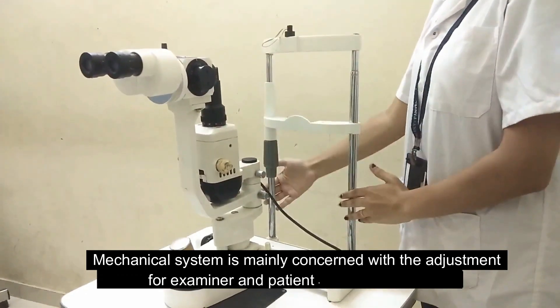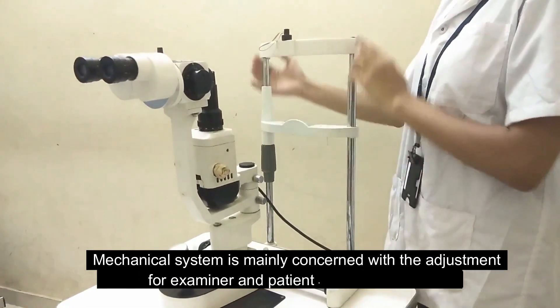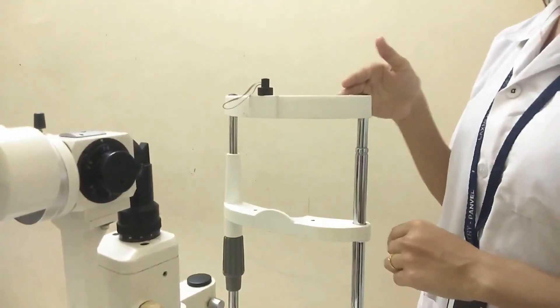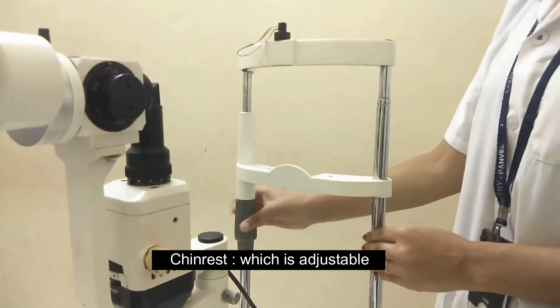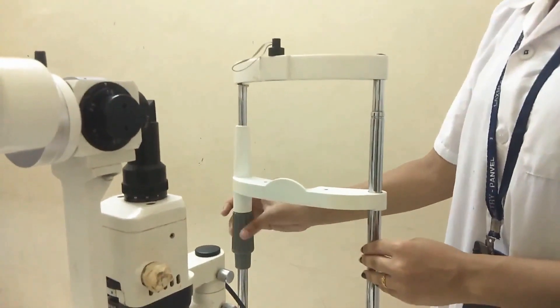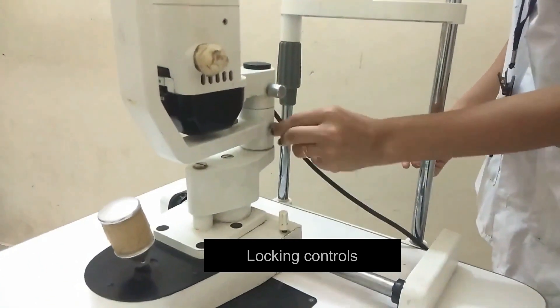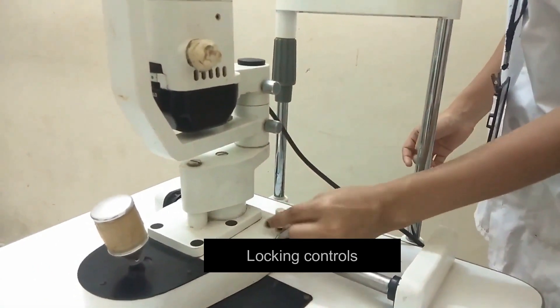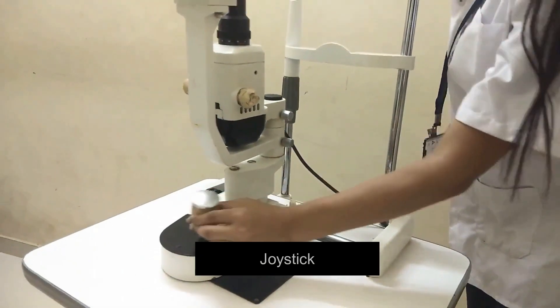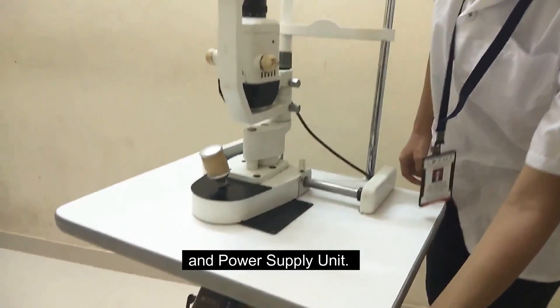The mechanical system is mainly concerned with adjustment for the examiner and patient. It consists of a forehead rest, chin rest which is adjustable, locking controls, joystick, and power supply.